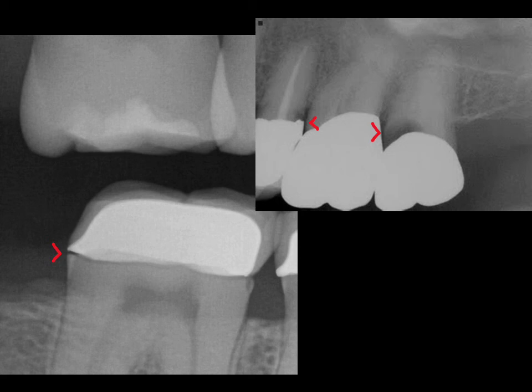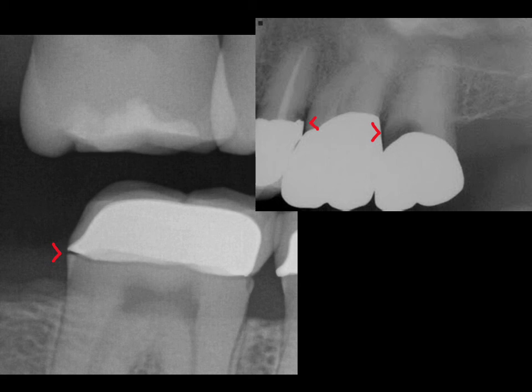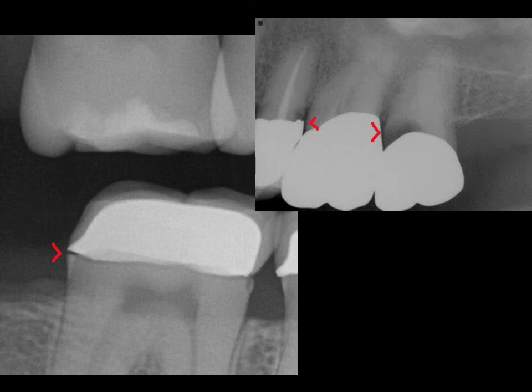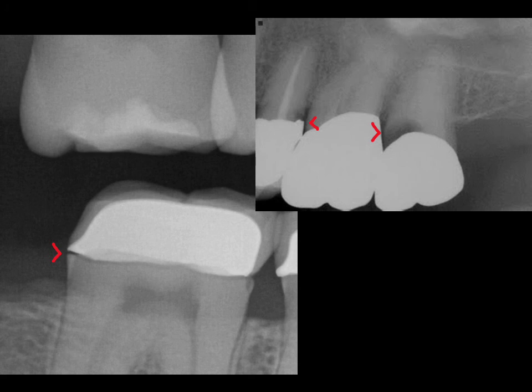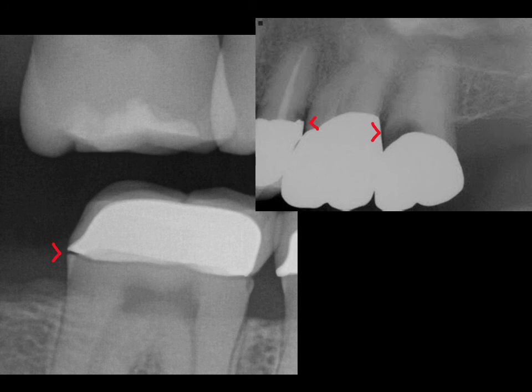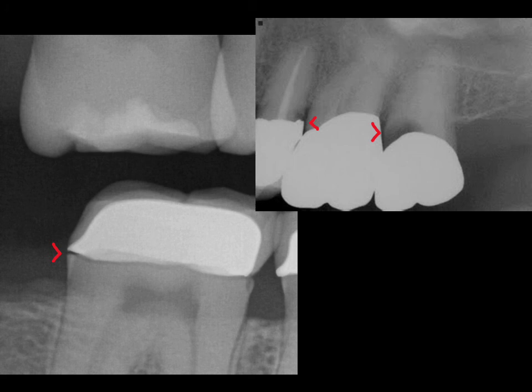This is different from an unseated crown margin or an imperfect laboratory-fabricated crown margin — this was just a gap in the crown margin when it was cemented. Does this need to be replaced? Maybe, but maybe not. If a patient got that crown 30 years ago with no decay occurring in 30 years, that indicates a super low-risk site. But if a patient got that crown three months ago and you tell them it needs replacing, they may bristle asking how it could need replacement when it's brand new. We have to educate our patients tactfully without attacking our colleagues.